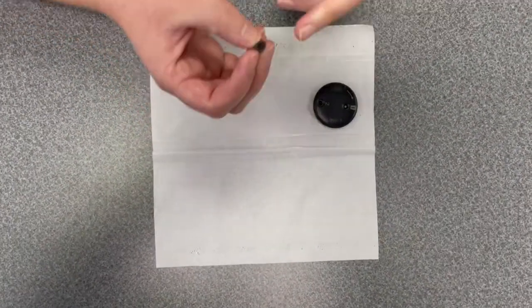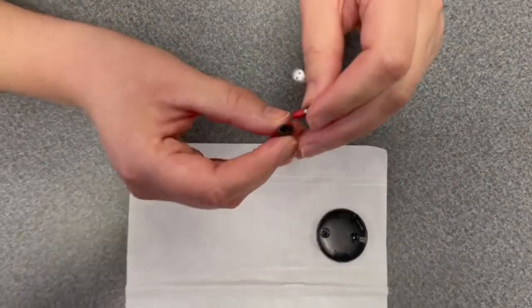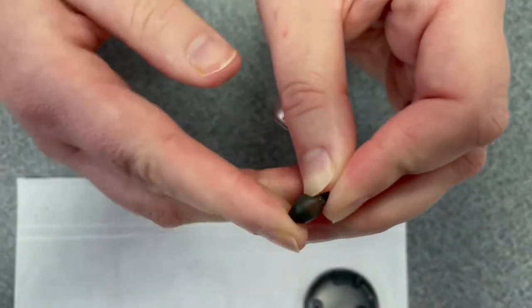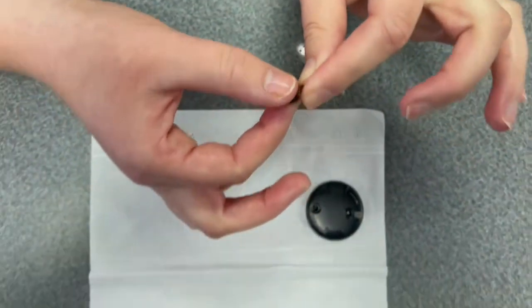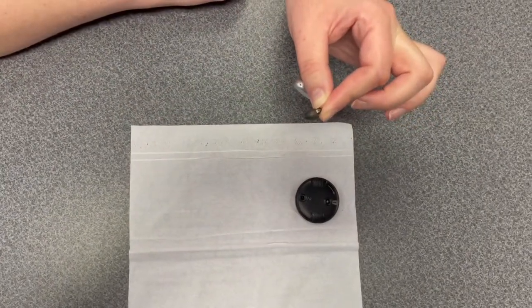Take your dome. The inside has a little hole in it. And push it back on. Use a little bit of force behind this. Give it a good pull to make sure that it's really on there. There, here we go.